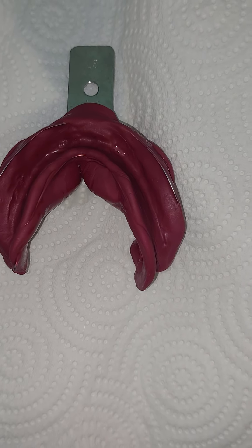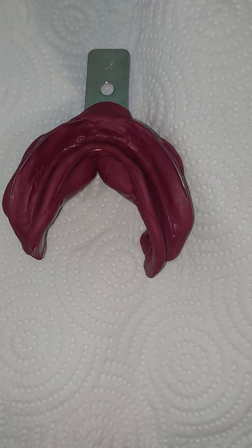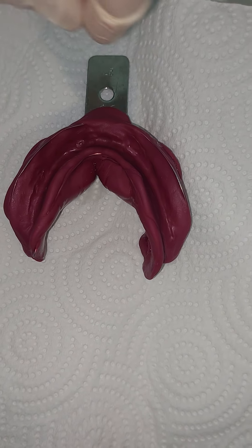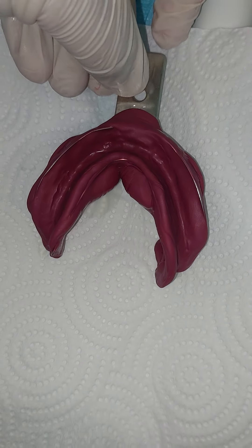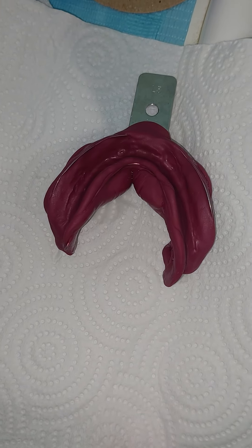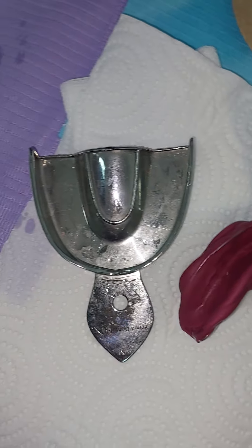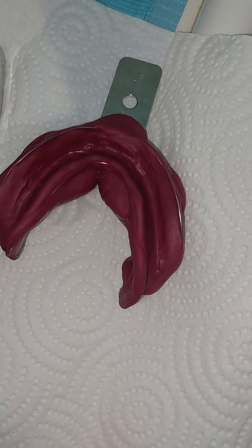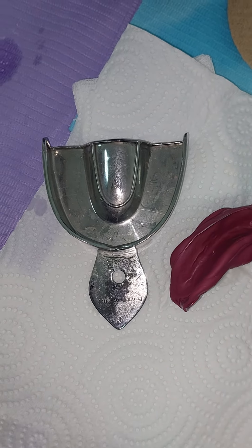Do you see that the edges of the tray are appearing? Is this a dentate tray or an edentulous tray? Supposedly a dentate tray. Sometimes this happens if you use a dentate tray for an edentulous impression, because dentate trays have long walls to accommodate teeth. This especially happens with these types of trays — they are square shaped. So the tray borders are longer than the borders we have. This might be a reason — you used an incorrect tray.